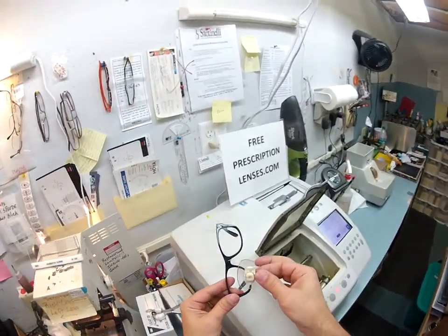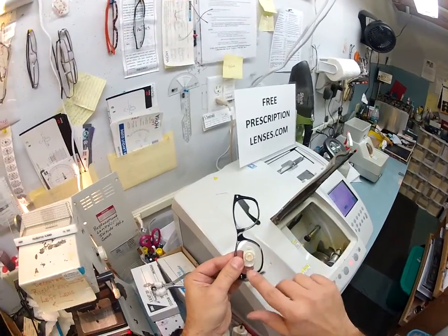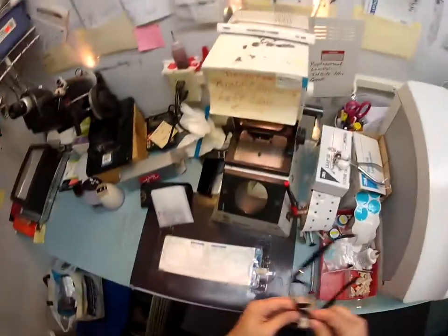So I'm going to try and mount the lens. I'm going to tuck it in at the outside edge closest to me. With my thumbs pushed down at the nose, it snaps right in.